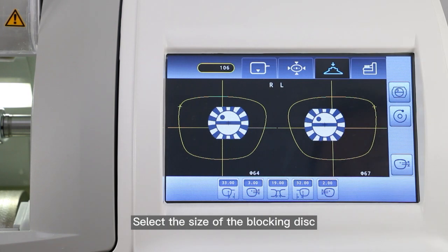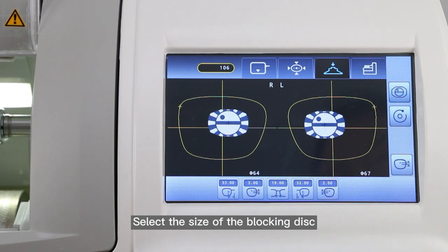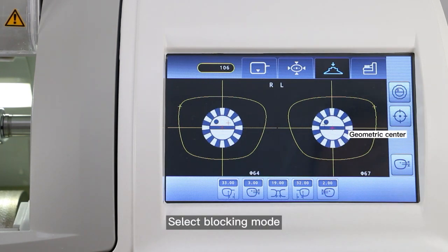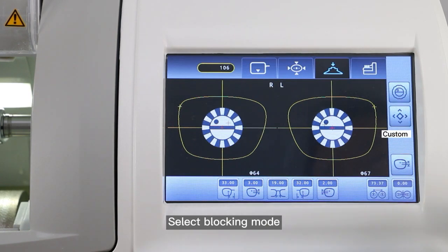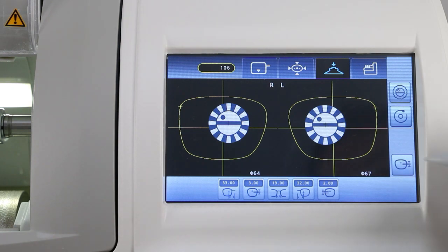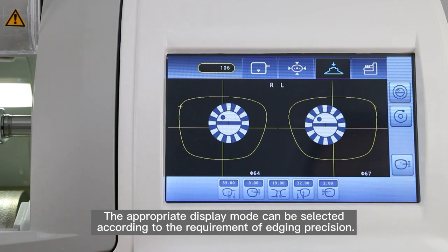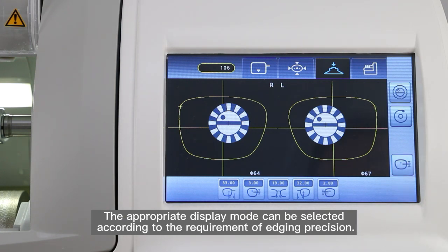Select the size of the blocking disk. Select blocking mode. The PH displaying mode switch allows the appropriate display mode to be selected according to the requirement of edging precision.